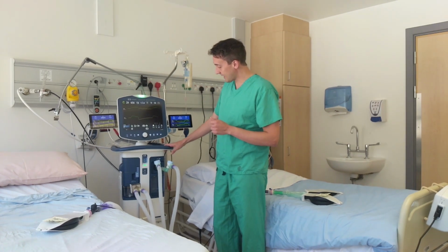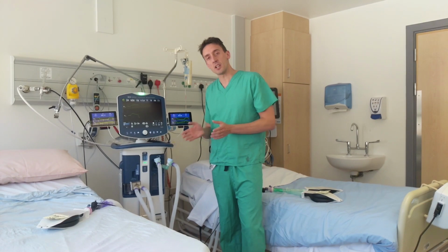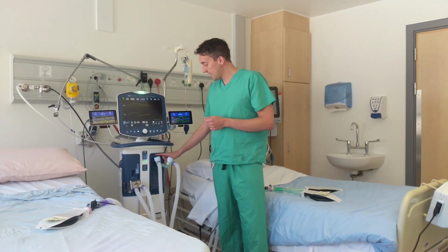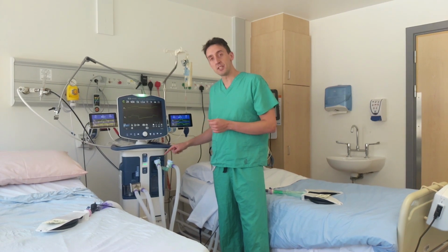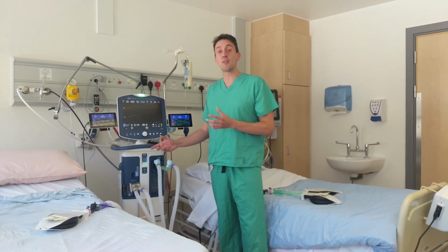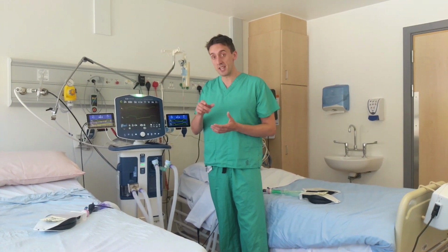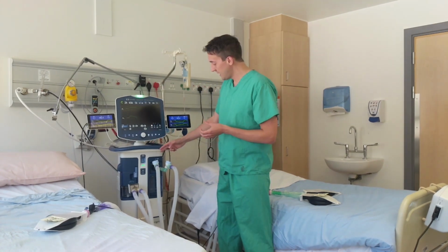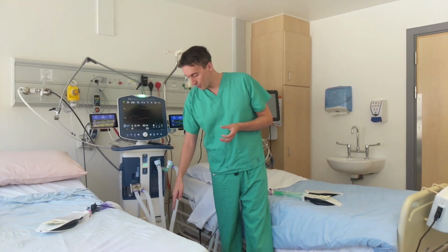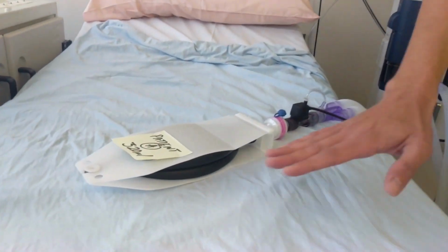As the gas leaves the ventilator at the beginning of the inspiratory limb, it immediately encounters a Y connector. Then, just after the Y connector, there is an APL valve on each limb of the circuit. This APL valve acts as a variable flow restrictor that allows us to achieve titration of tidal volumes and pressures. So I'll just focus on one limb. Coming around then, we go through standard respiratory tubing and move towards the patient represented by this test lung.